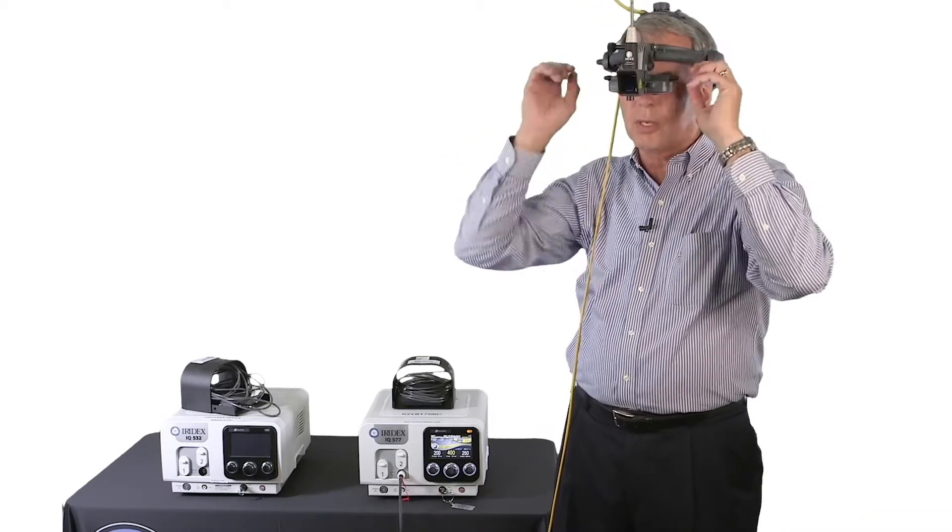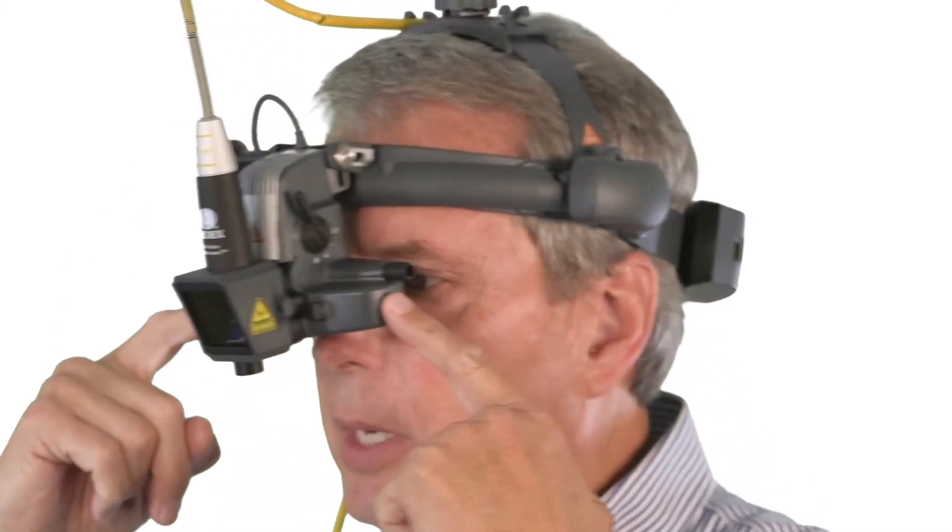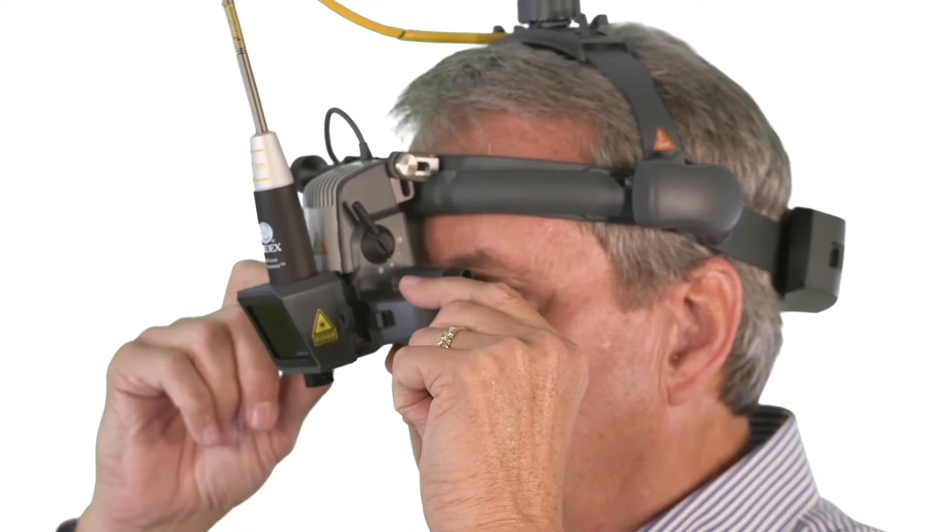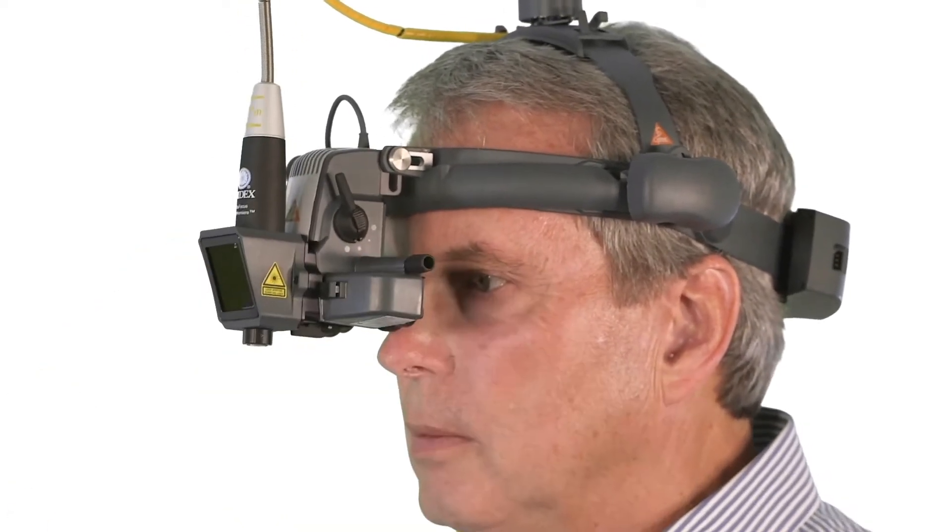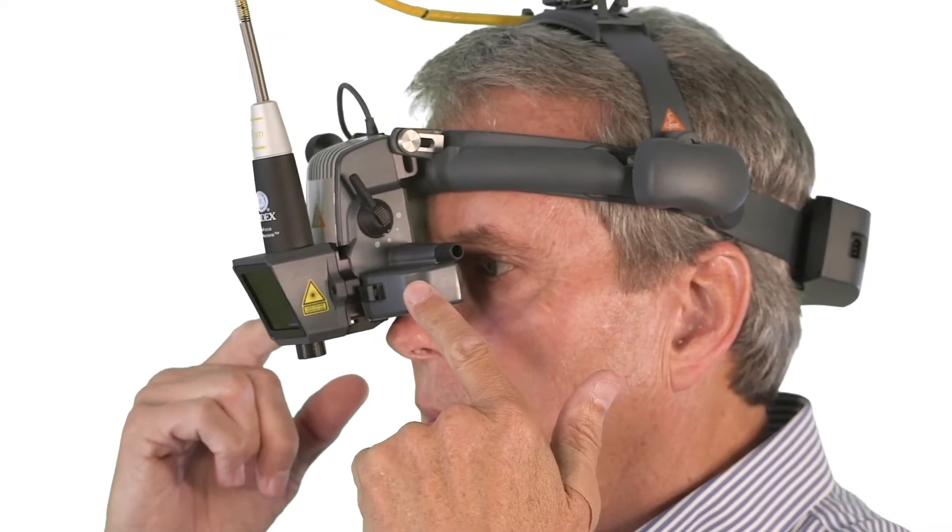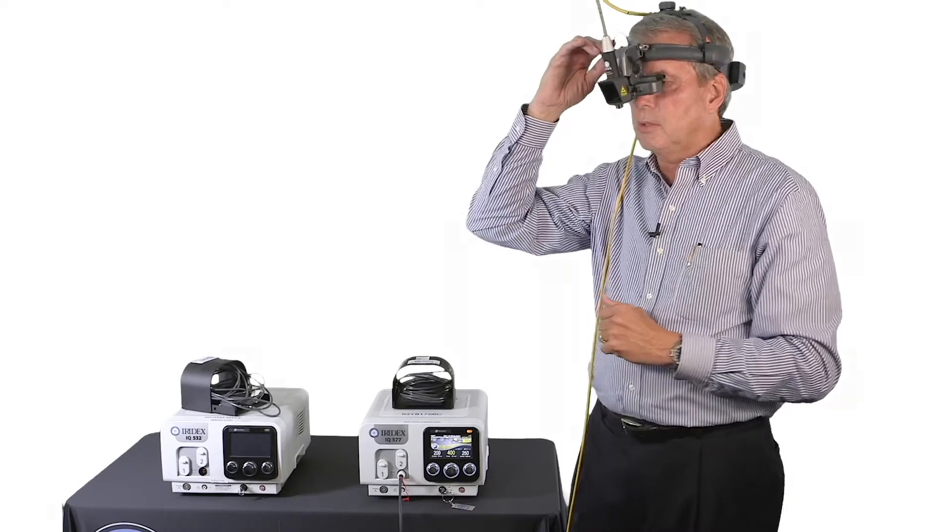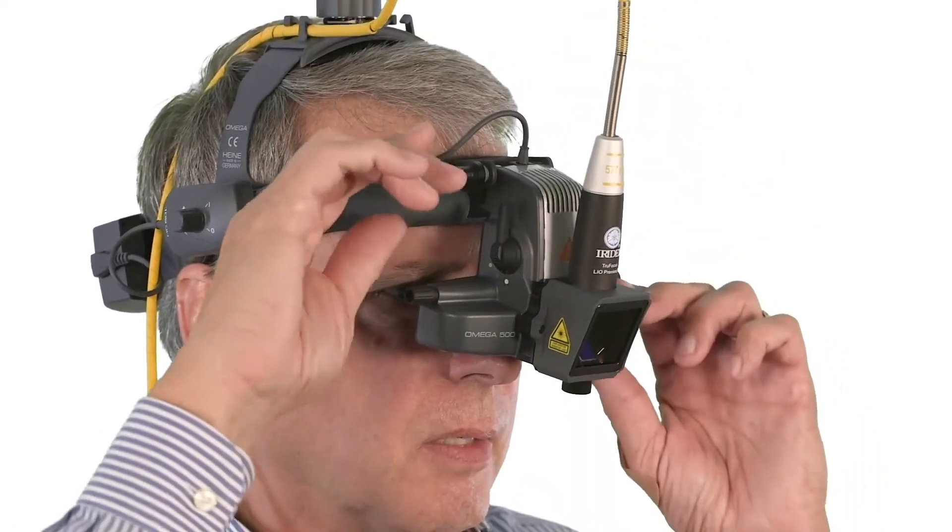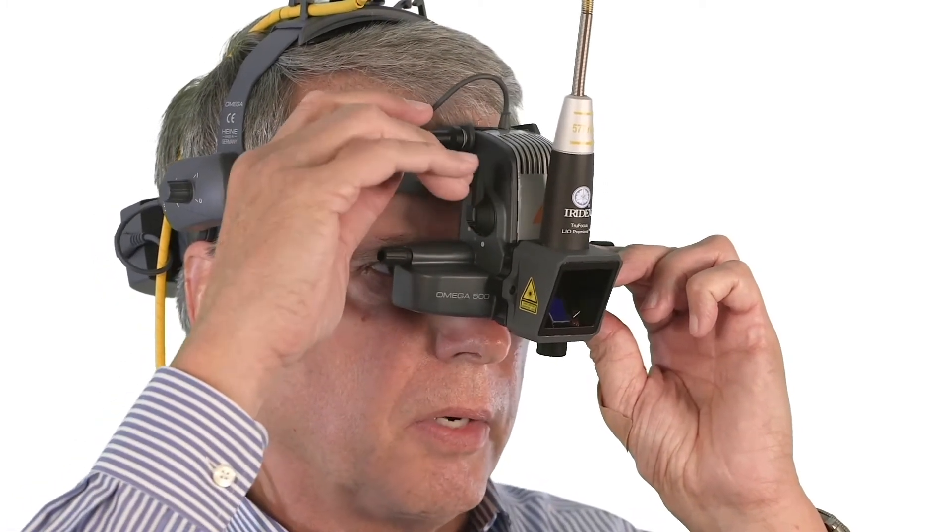Placing this and putting the indirect in place, it's imperative that you have the optics body as close as possible to your line of sight. As opposed to this, this is what you should be looking at. If you have to, you can adjust the vertical height of the optics body with a large control knob up, down, in, or out.